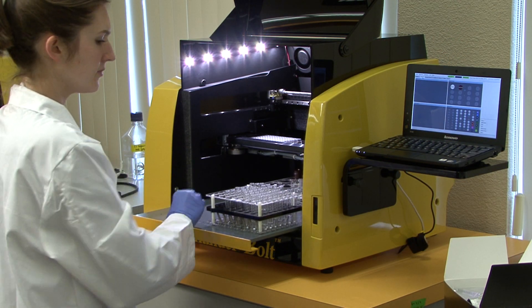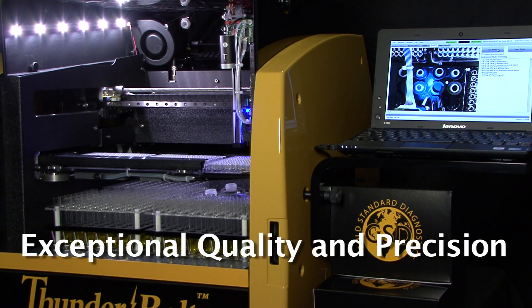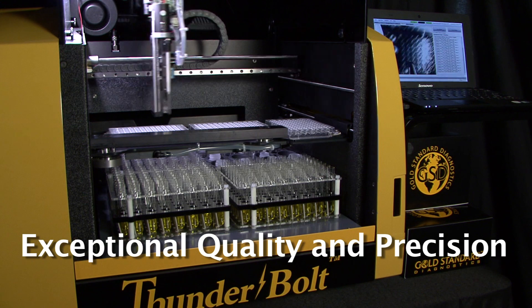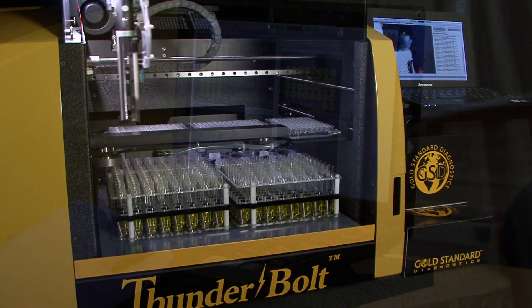The Thunderbolt is the total solution for your lab. Experience exceptional quality and precision. The Thunderbolt's cutting edge technology and engineering are incomparable.